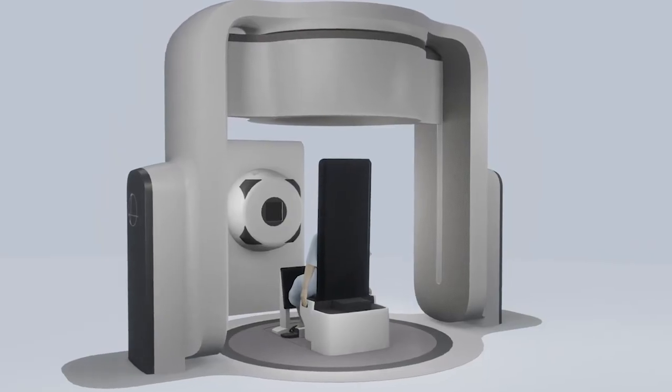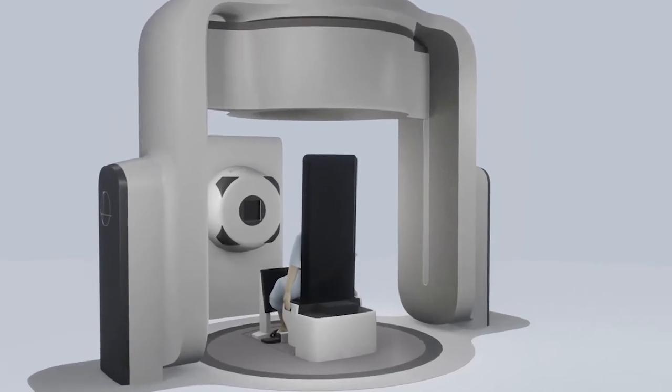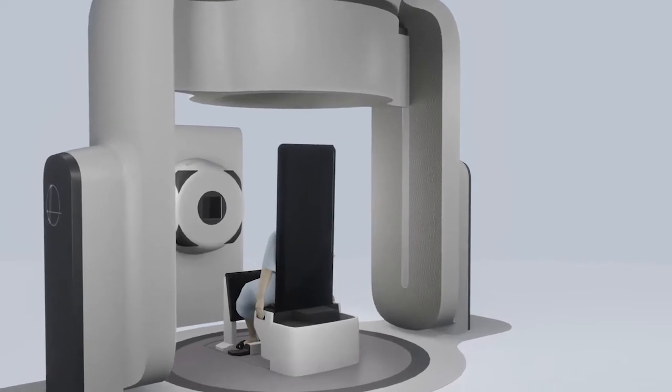With a fixed proton beam, we bring upright dual-energy diagnostic quality CT to the ISO center.